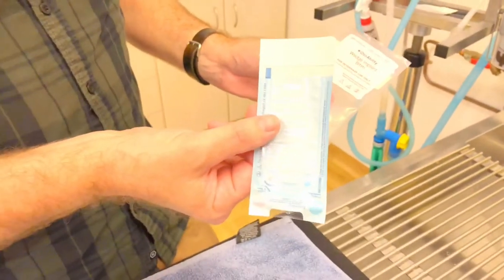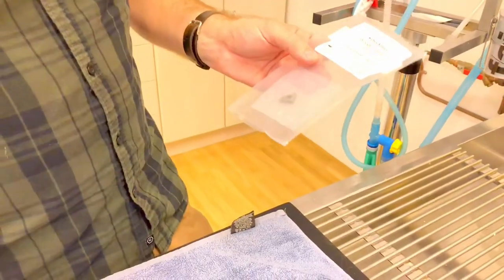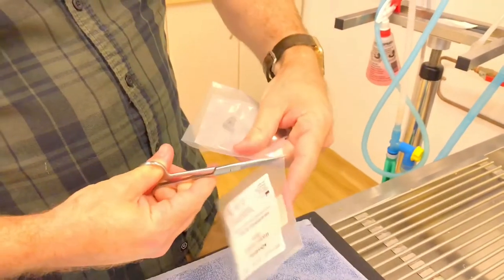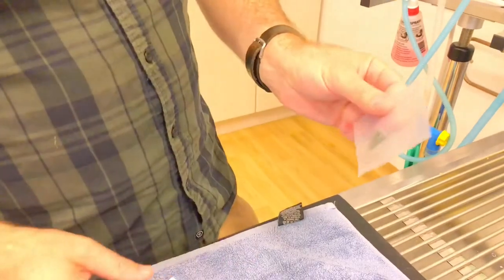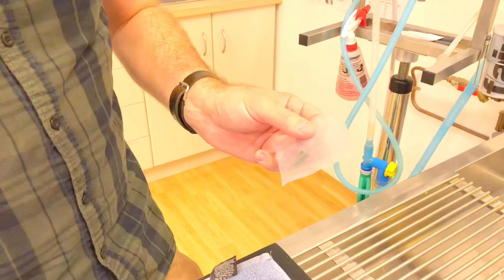We're going to put that autoclave bag into another autoclave bag. There's an outer packet that we will open. Now we've got the actual implant. It's really important that you don't touch these because they absorb skin cells and all sorts of stuff into them.